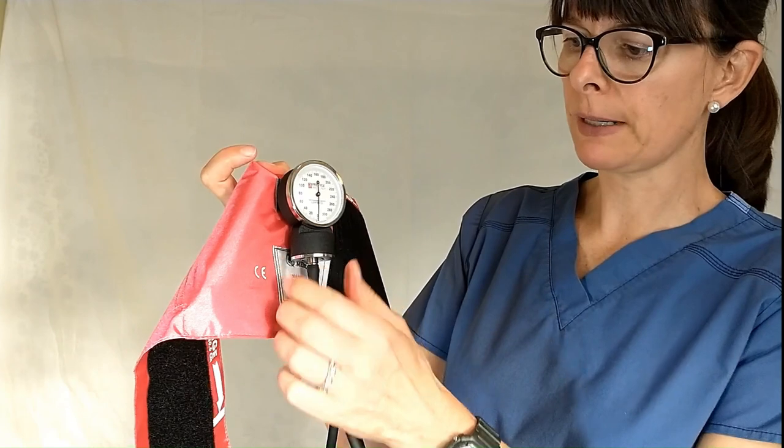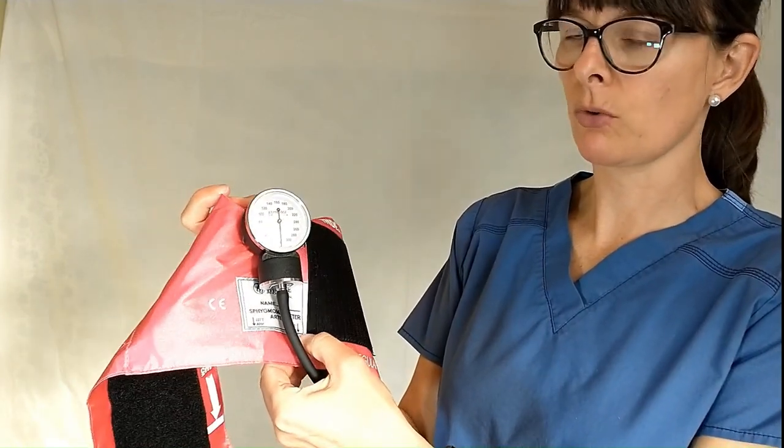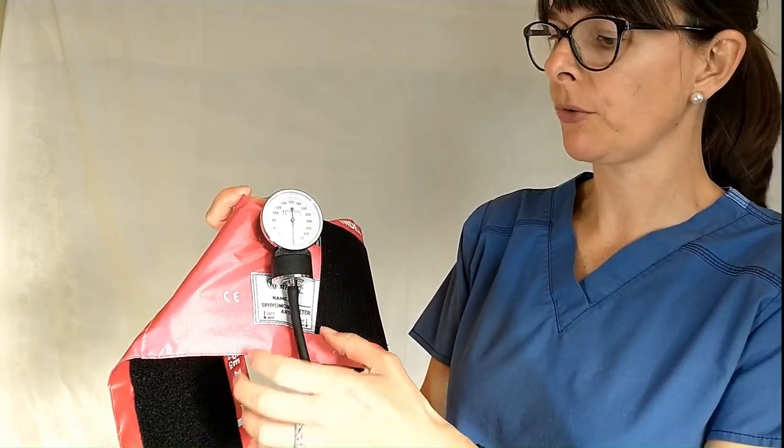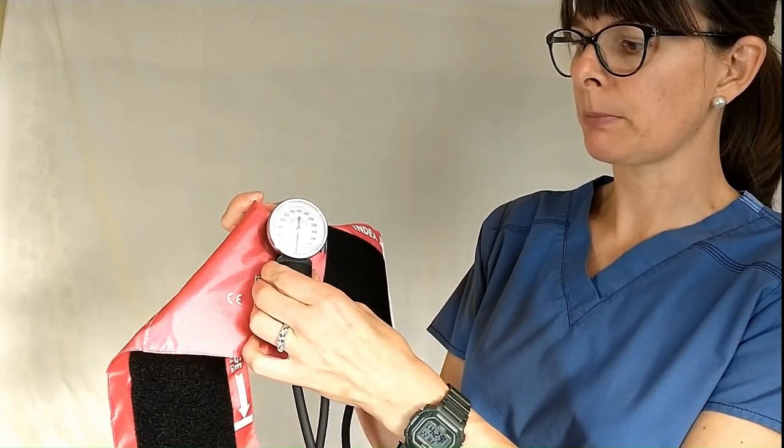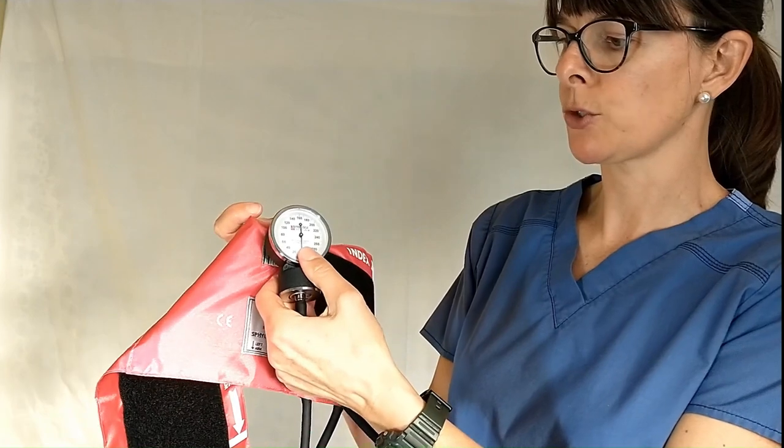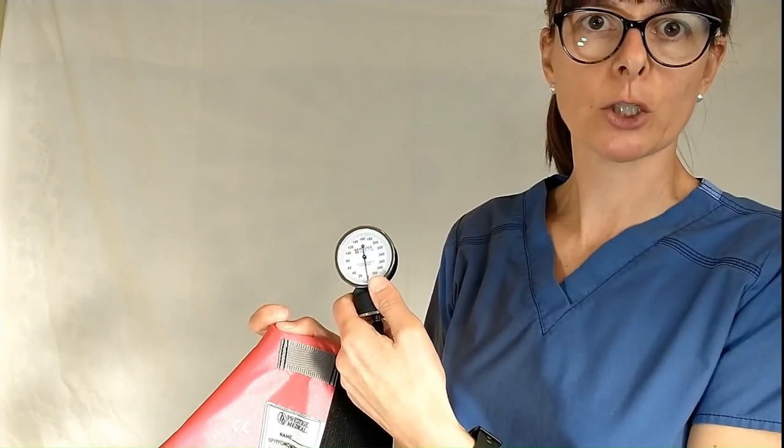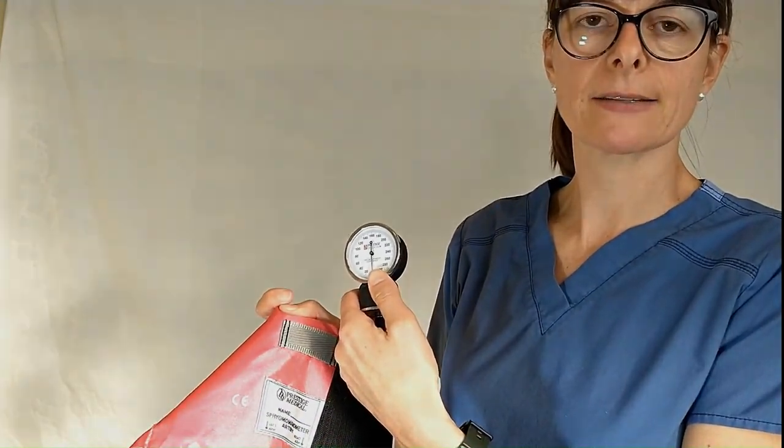Now both of them are a little flimsy, and remember it's going to be sitting on the patient's left or right brachial artery, so it might be more on the inside of their upper arm, so it might be a little bit difficult. So sometimes what I do is I just unhook it and ask my patient to actually hold it to where I can easily see it.